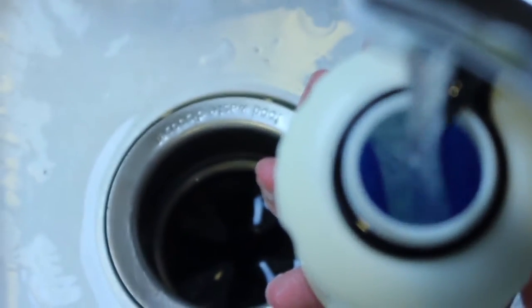Second, unscrew the top compartment and place your oral appliance onto the center rack. Screw everything back together and fill the case with enough water. Screw the top lid back on and give the VCZ case a little shake.